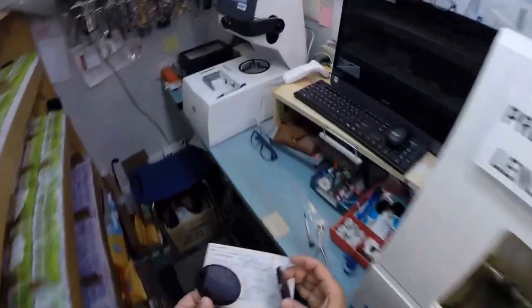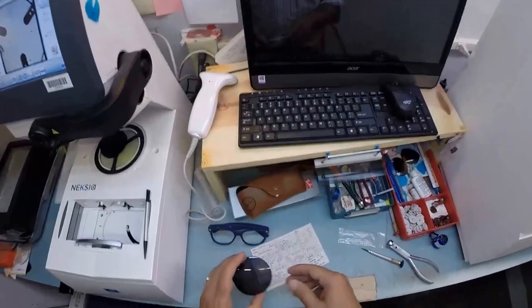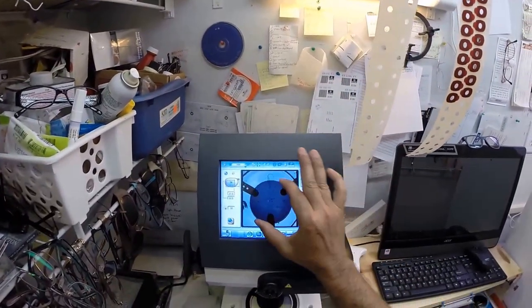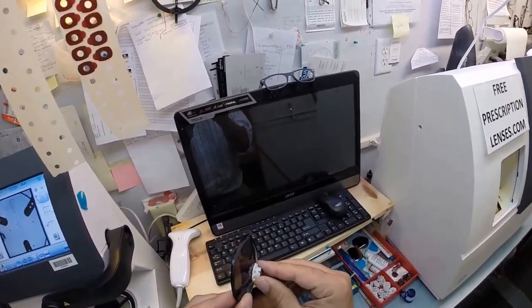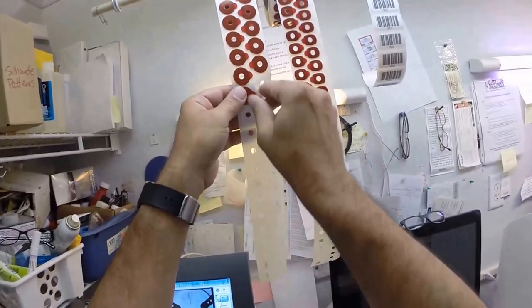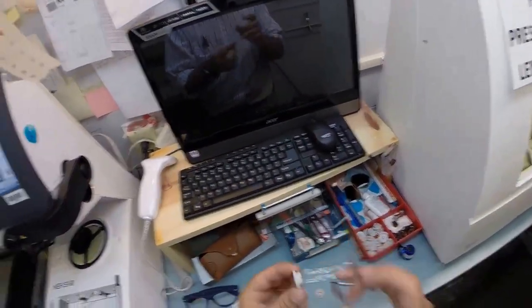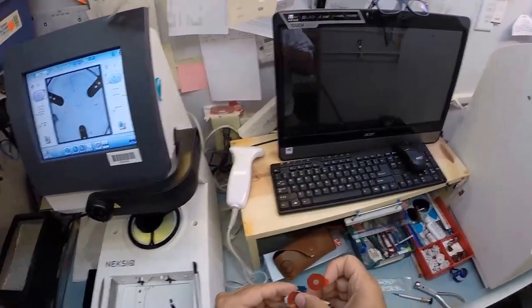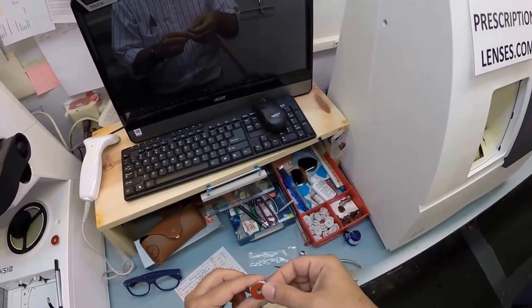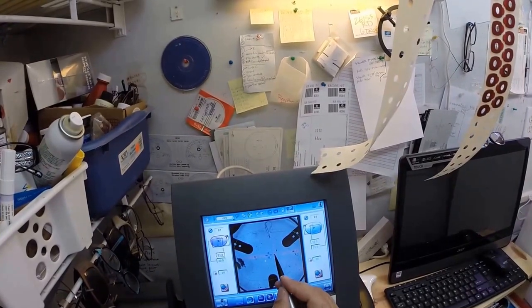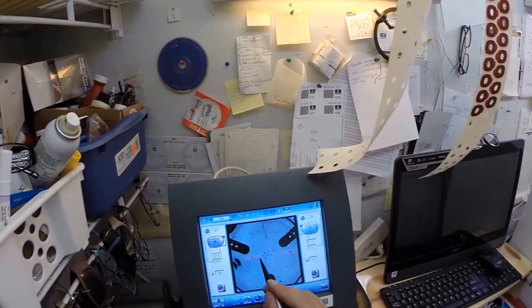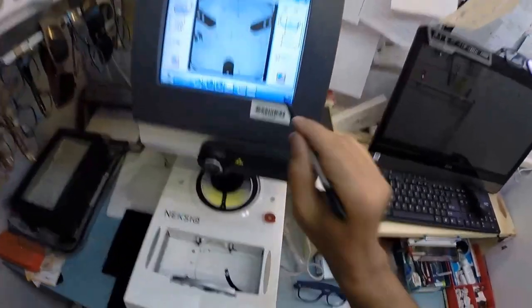Put your right lens onto the little platform there. The reason I put those dots on there is your lens has to be oriented just perfectly for you to see your best. Now this is a block. I like to call it Jenny from the block. I need to attach this to your lens while it is cutting. And so I need a double-sided adhesive sticker. Now on the back is a little silver magnet. That's going to do its job twice. Put the sticker on, pull the sticker away. The black side is the sticky side. Now this magnet is going to marry up to the one on the side there. And those three dots that I put on there, that is your optical center. Those other two dots line up and tell me that it's in there perfectly on the correct meridian, not rotated at all. Hit that button.